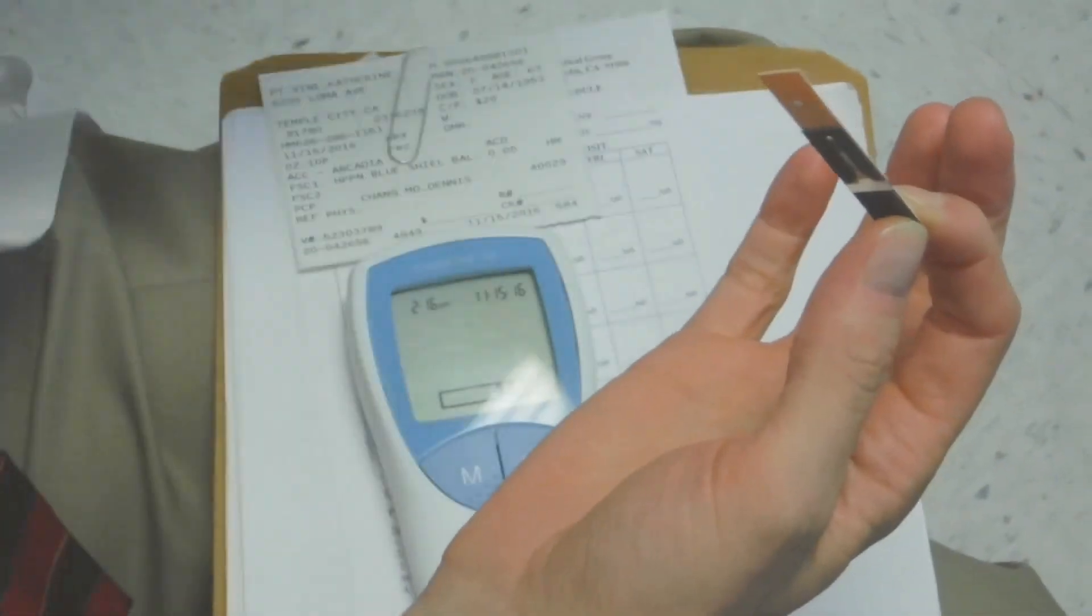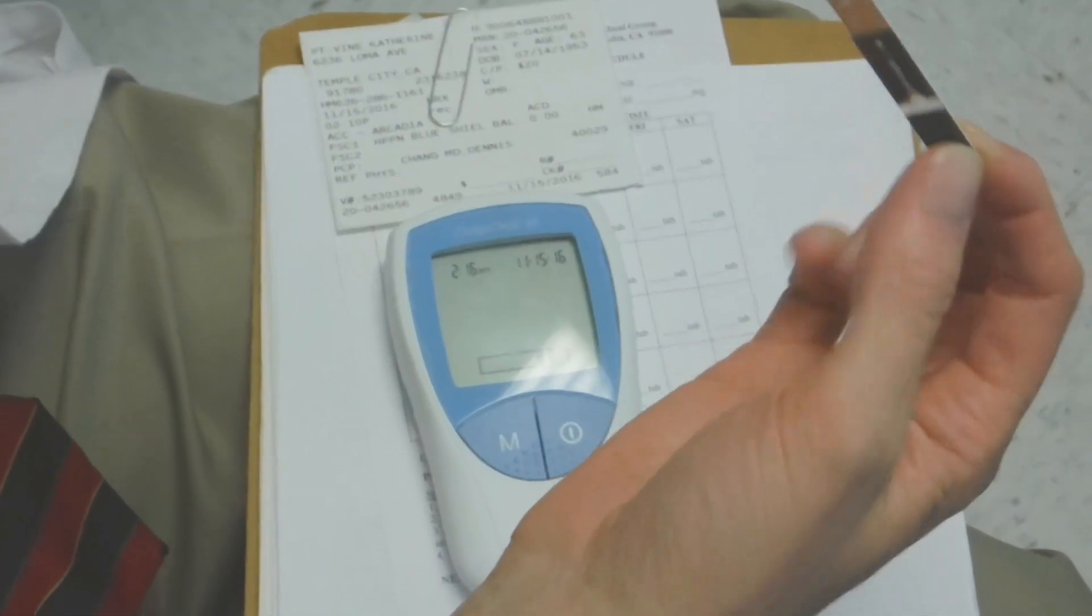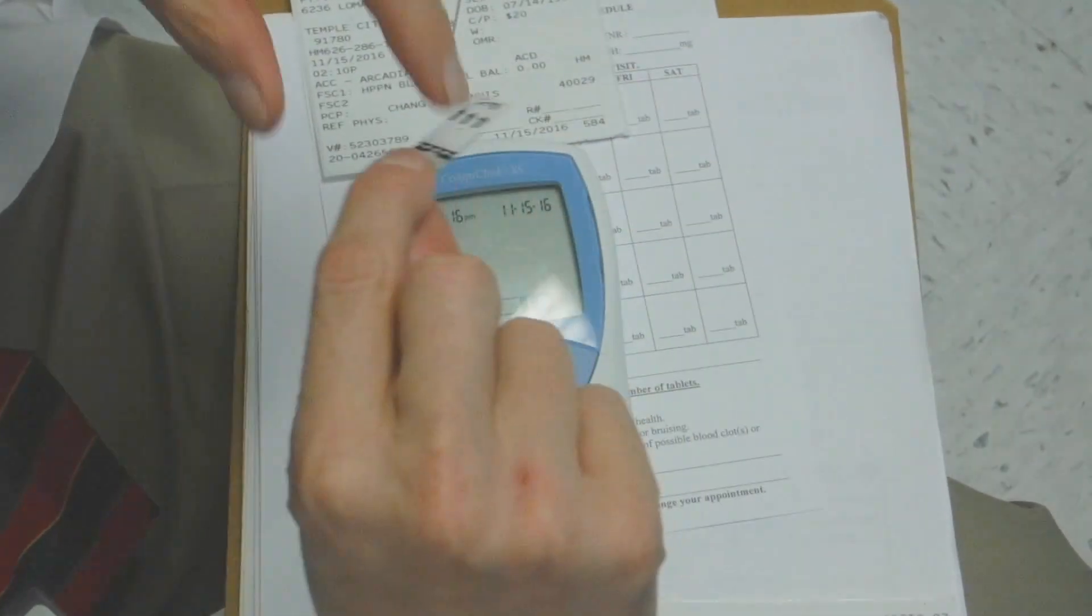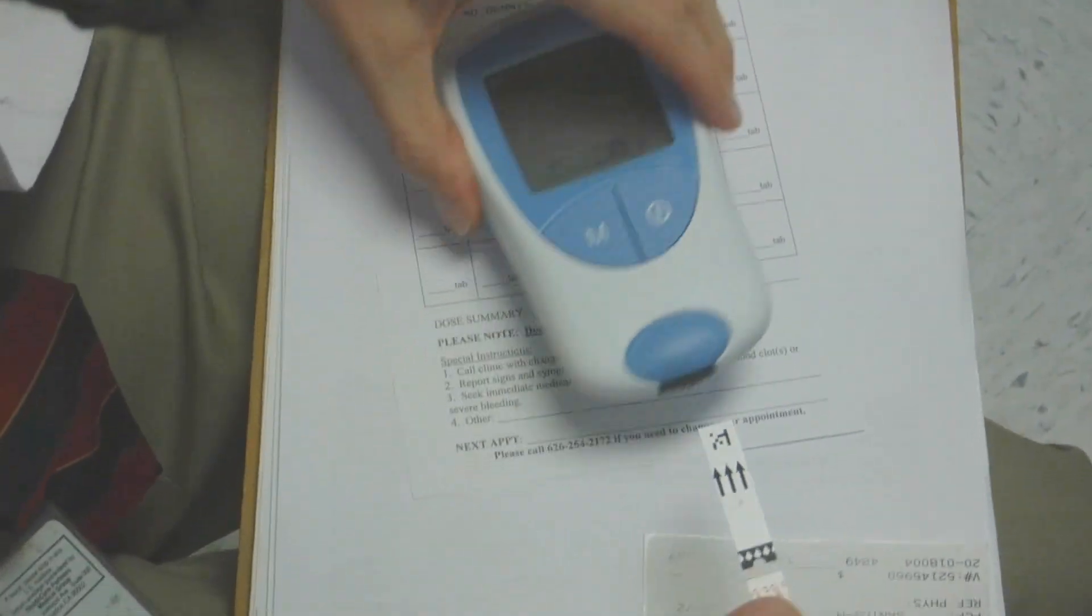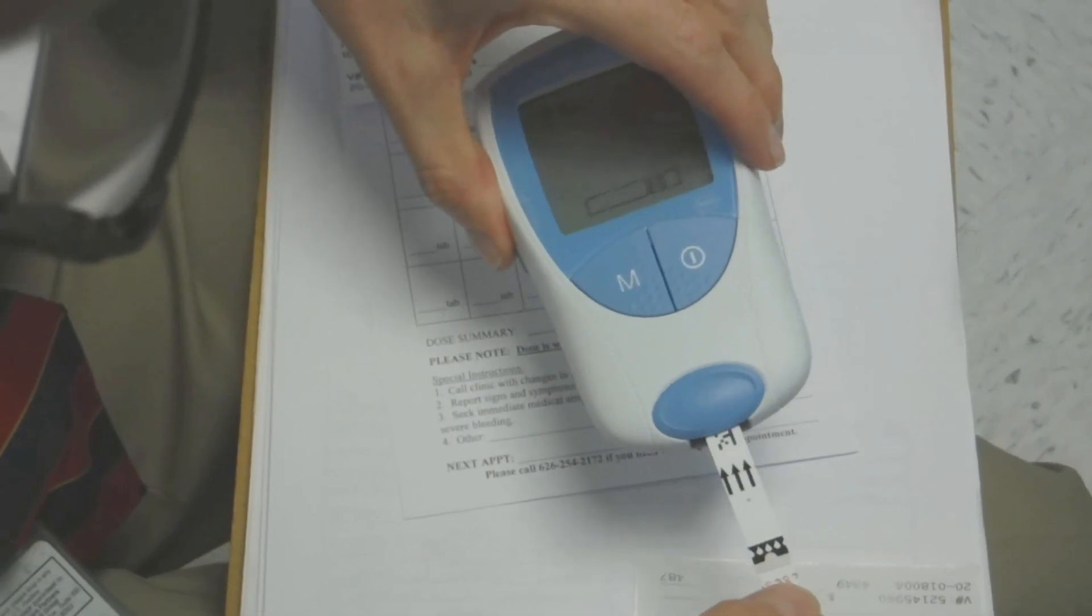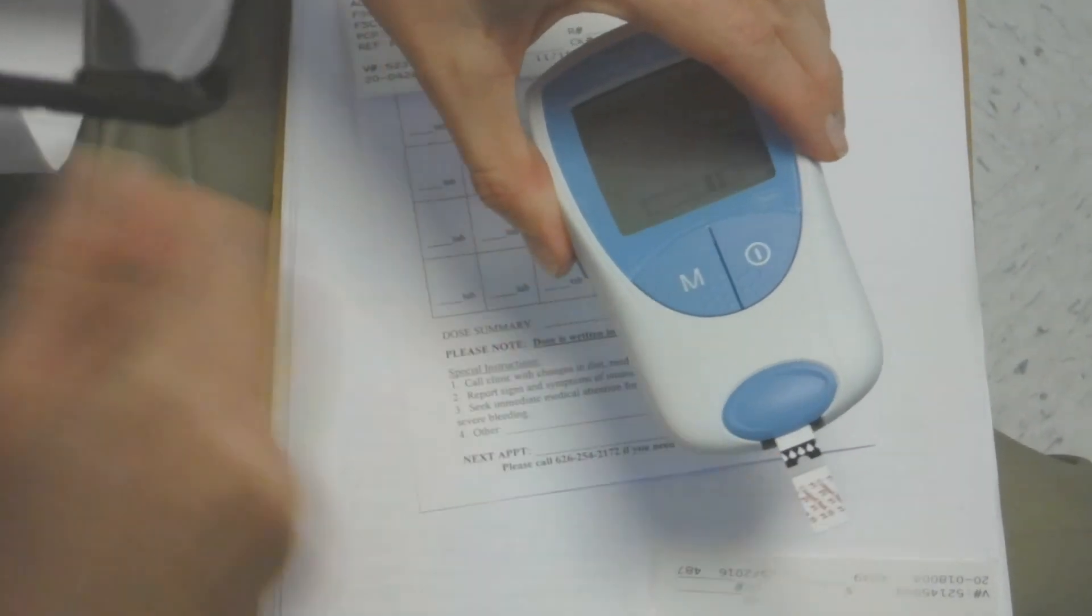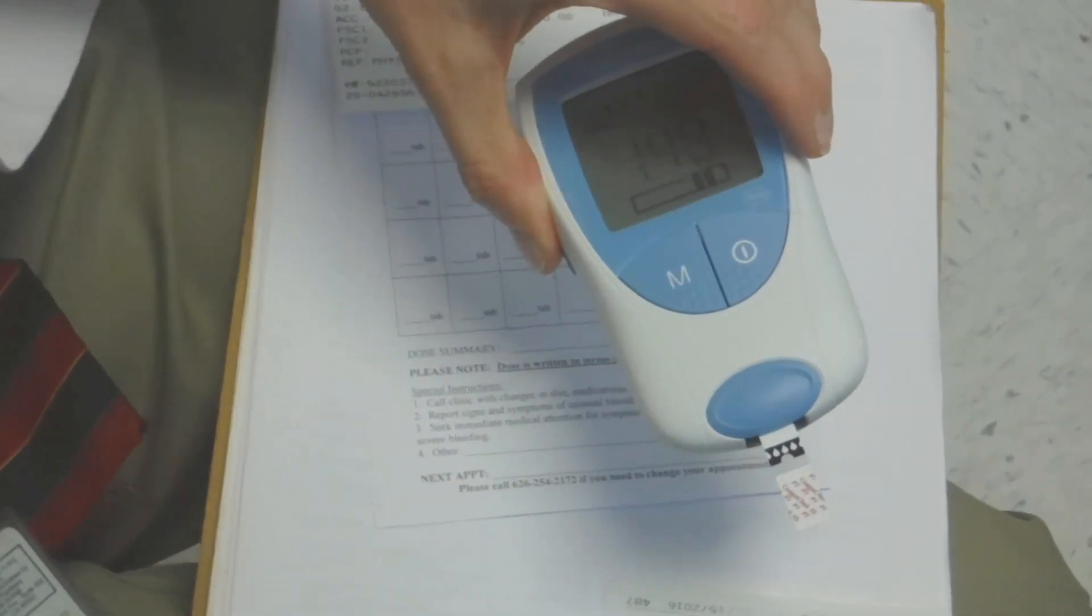I'm not a chicken, I'm pretty good at this. I think I have to twist it or something. Yeah, you want to make sure these are sensitive to moisture and temperature. Now, there's a little bit of play, but you slide it in like that.